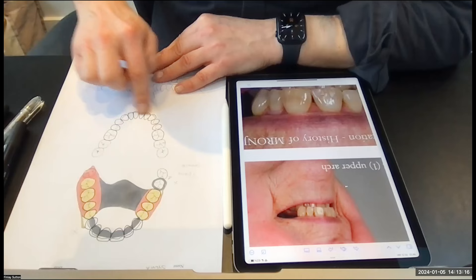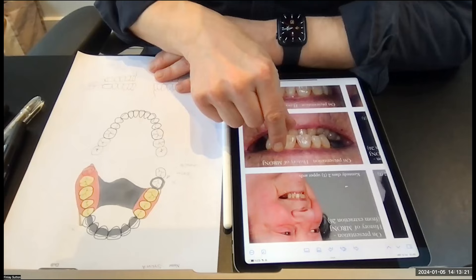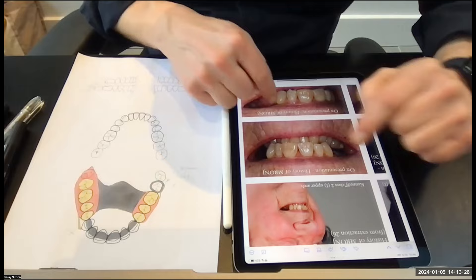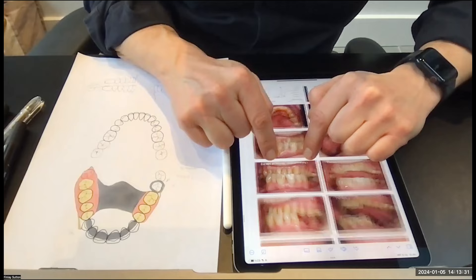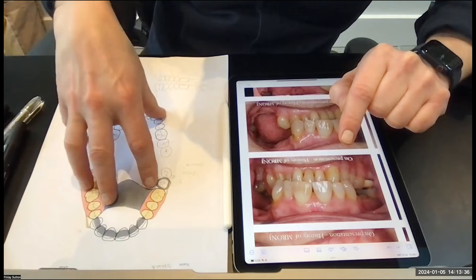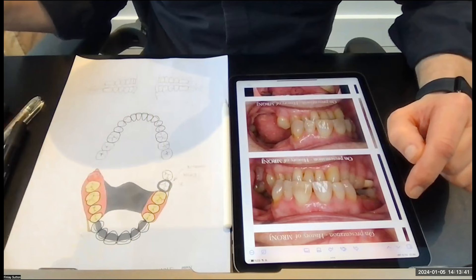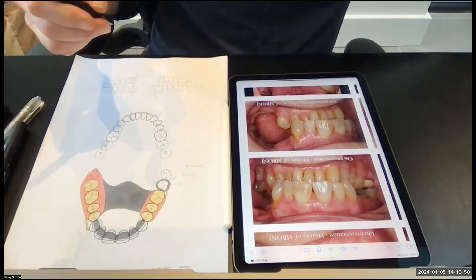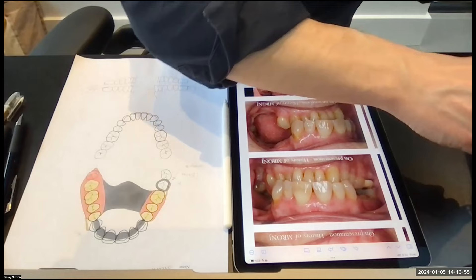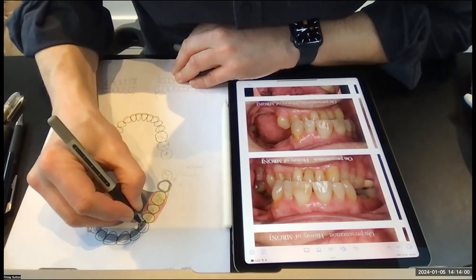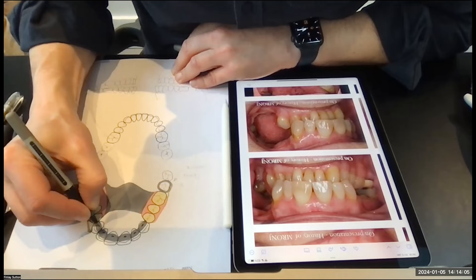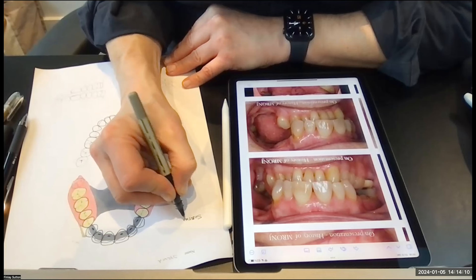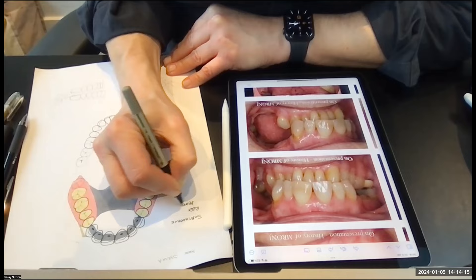I don't really want to be jacking the patient open too much. I am going to be opening the patient's bite up a little on the whole of this denture — it's going to be a splint slash denture — but I don't want to jack it open too much. So in this case I'm going to do some subtractive rest seats. I'll colour those in and indicate subtractive rest seats on the upper 3 to 3.